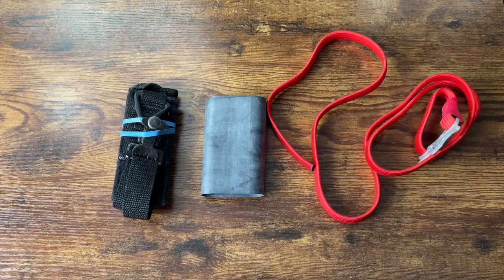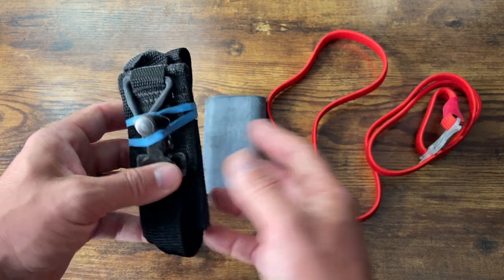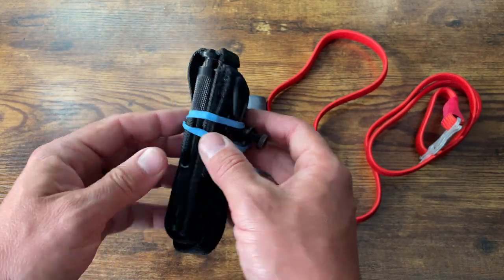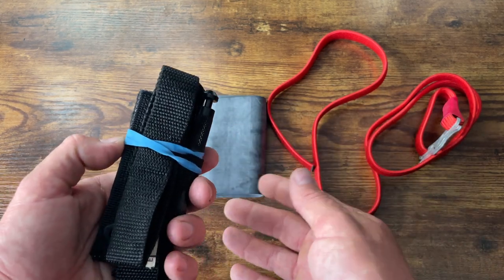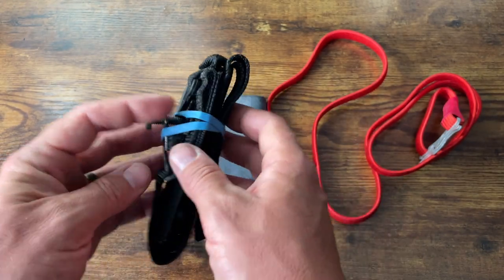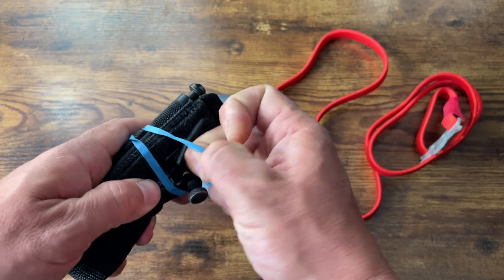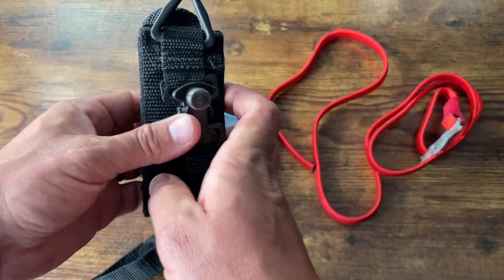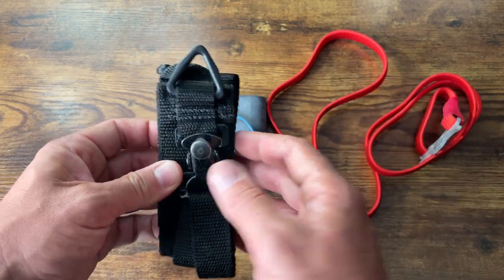Let's start with options I don't like. The first is an old soft tourniquet - not a SOF-T Wide. It has a strap that's about an inch wide. From the research that's been done, for a strap to apply the right amount of pressure to a limb to cut off circulation you need it to be about an inch and a half to two inches. This being only an inch doesn't give you a lot of surface area. The hardware is kind of prehistoric, old and it rusts. This would work in a pinch - I mainly keep it around as a training tool and demo TQ.